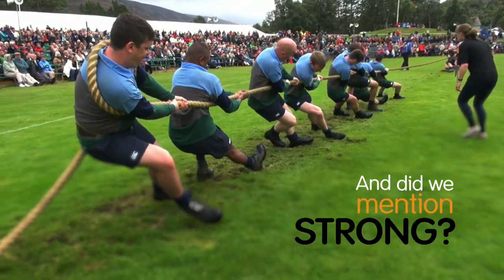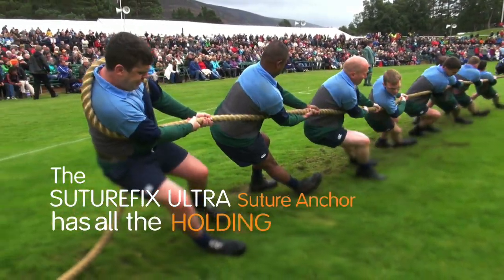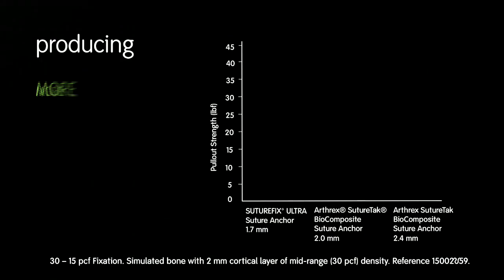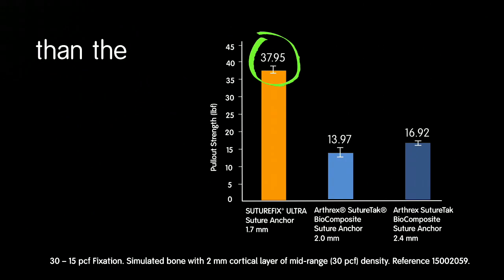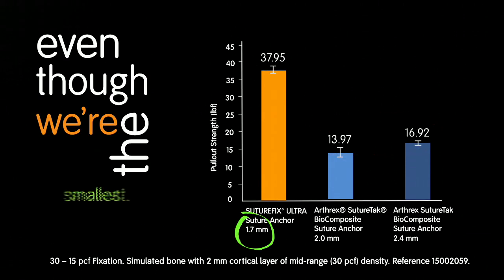And did we mention strong? The SutureFix Ultra Suture Anchor has all the holding power you need, producing more than twice the pullout strength than the top two competing hard anchors, even though we're the smallest.